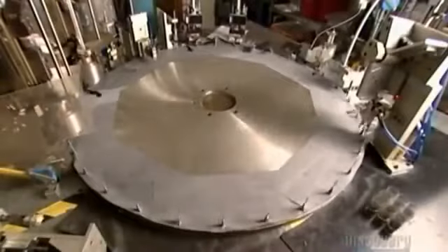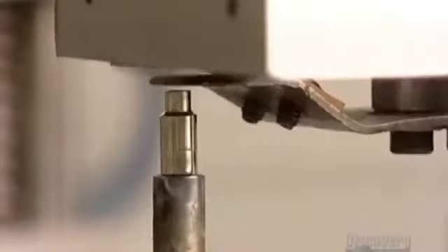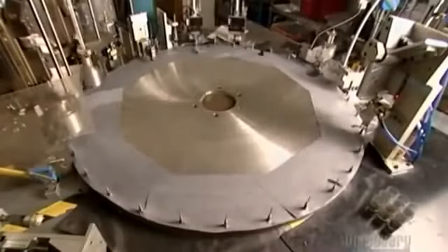Once they pass inspection, it's on to the automated assembly machine. Brass and nickel-plated fittings called hubs drop onto pins on the wheel. The needles fall into the hubs, and metal fingers align them so they fit together precisely. The hub is the piece that will connect the needle to the syringe. Automated crimpers press the needle into the hub — sheer friction bonds them. Two metal pads on the same wheel position the needle, and a plastic sleeve drops down, encasing the pointed tip. Finally, a robotic arm lifts the needle off the wheel and drops it into a bin.